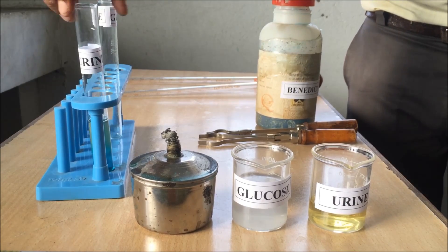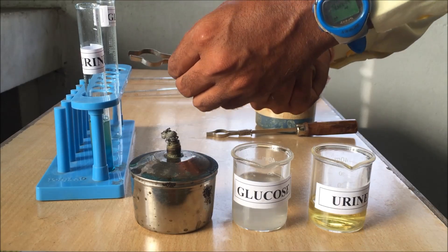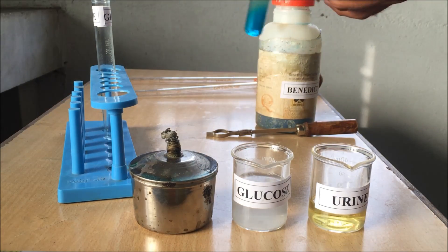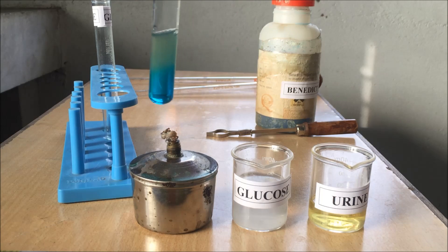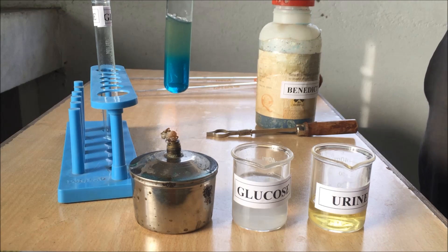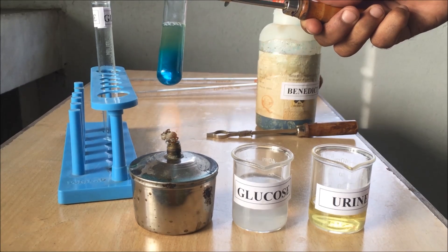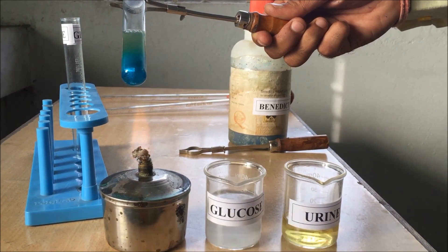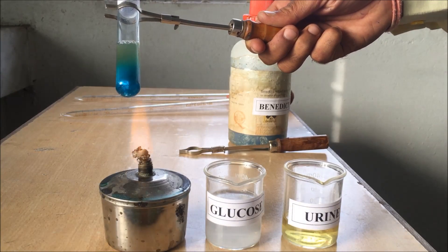Once the solution has been mixed, we will clamp the test tube with the test tube holder for easier handling. Now we will ignite the spirit lamp and place the test tube over the flame. We have to heat the test tube for 2 to 3 minutes slightly above the flame. Tilt the test tube towards your left or right to avoid any bumping effect, and you should not keep the test tube pointing upward facing your face.